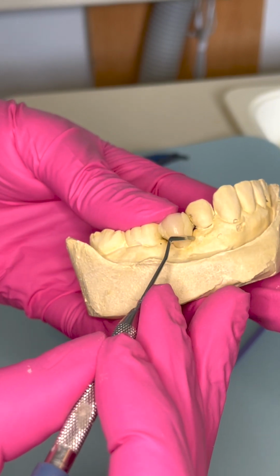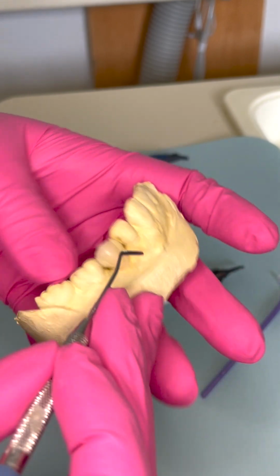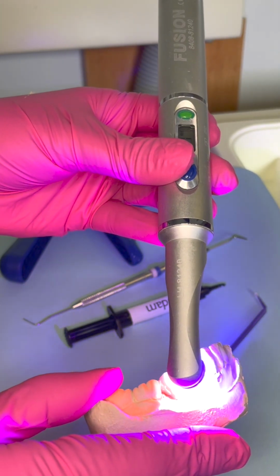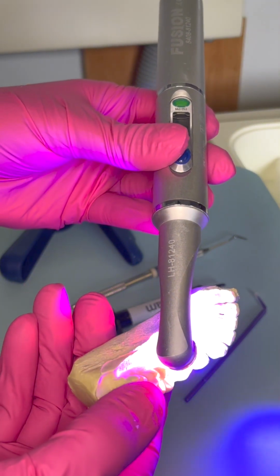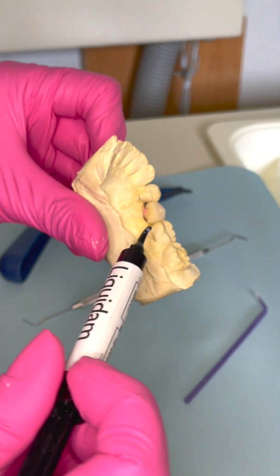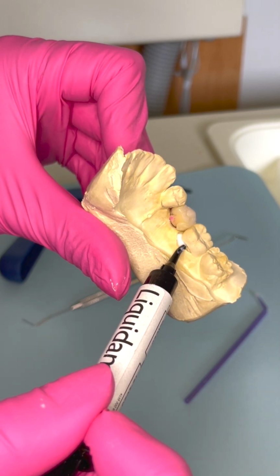And I guess you can also use any other type of wax. I've done that before. Sometimes I need it, especially if I don't have enough expired composite. And if you don't have a denture tooth, you could just create one, like a little doughy thing with, again, the expired composite, and then just have something that is similar to a tooth, and then just put it there, and then just add the size like I've been doing it.